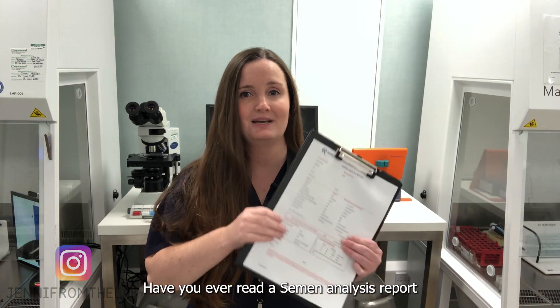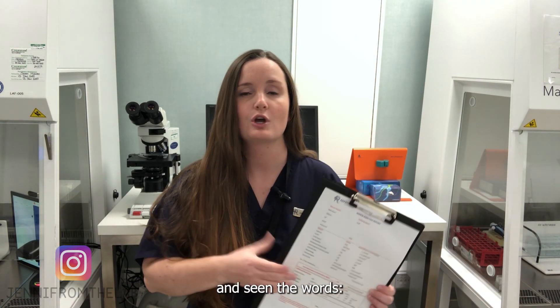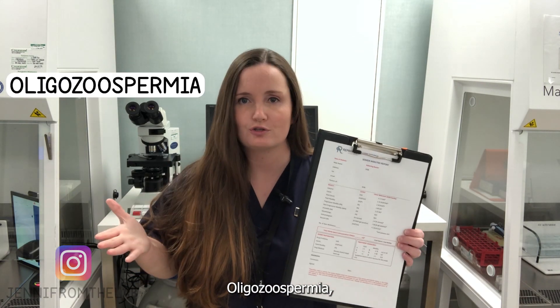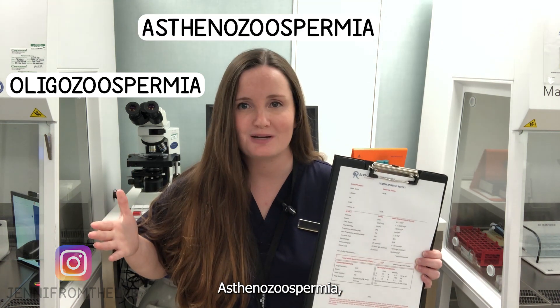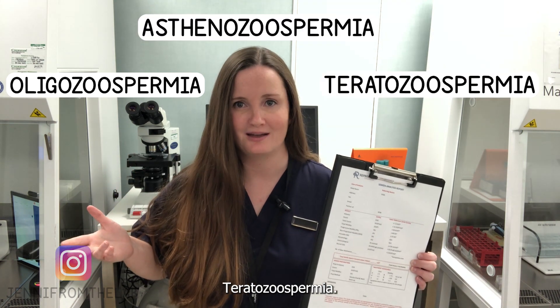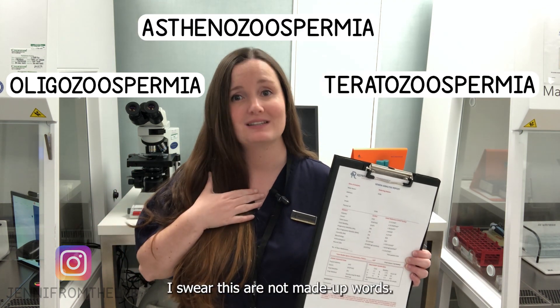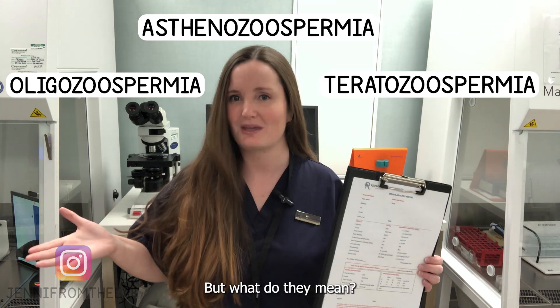Have you ever read a semen analysis report and seen the words oligozoospermia, asthenozoospermia, teratozoospermia? I swear these are not made-up words, but what do they mean?